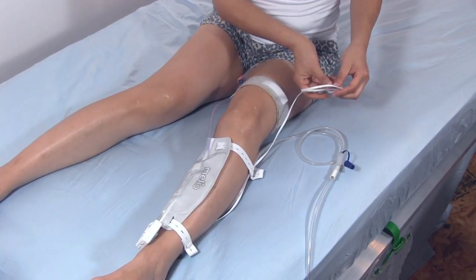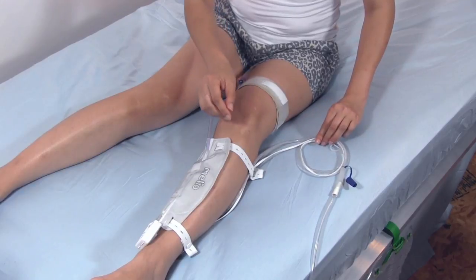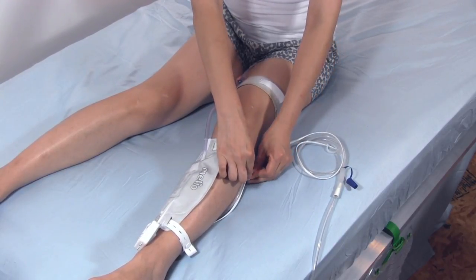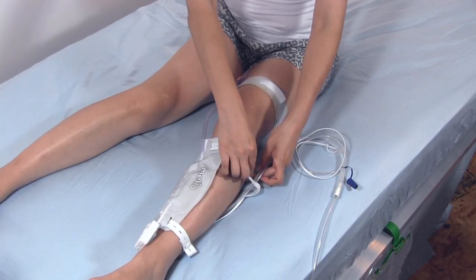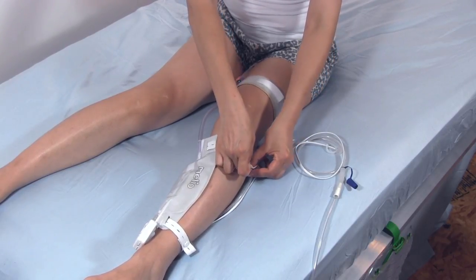Position the controller cable and discharge tube so they will not become entangled while you sleep. Loosen the two leg bag straps and release the tubing and cable if desired.